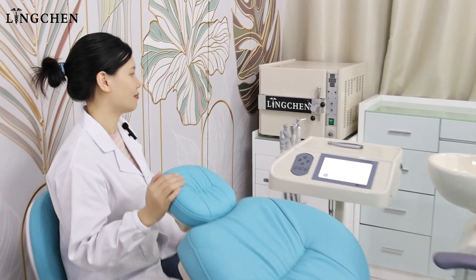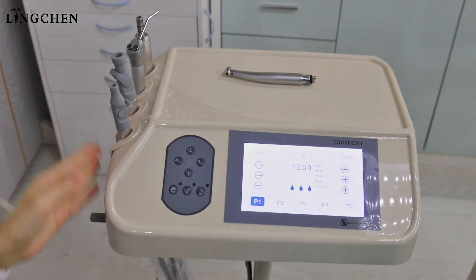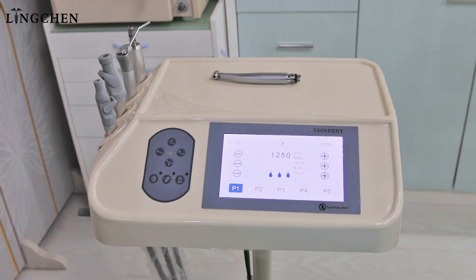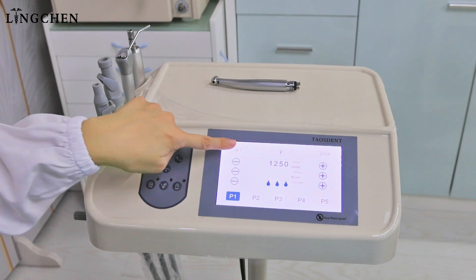Now, we see our built-in implant motor on the dental chair and how it is working. It is installed beside the assistant tray. It is so near to the patient and to the assistant and dentist. It's easier for the dentist to adjust the stream.